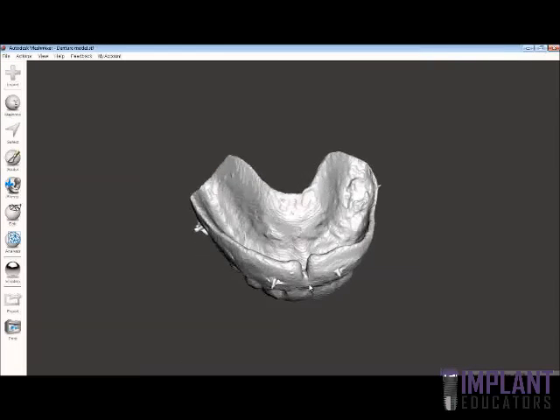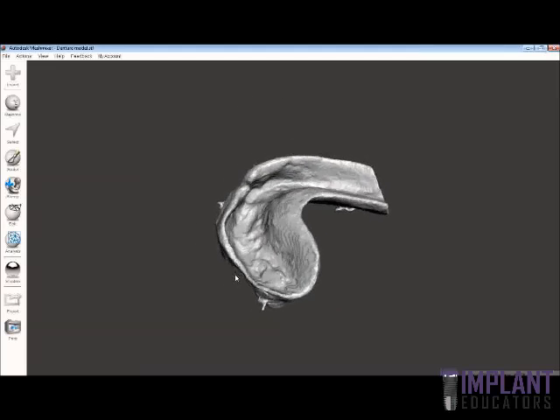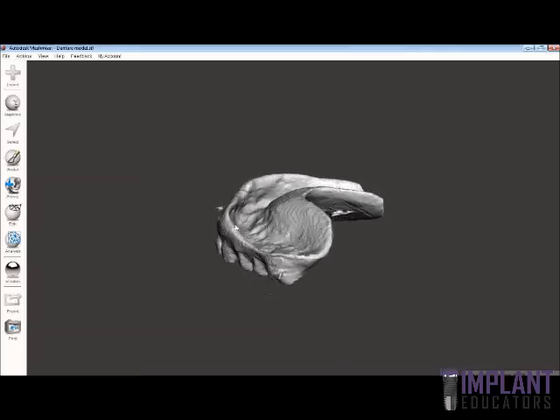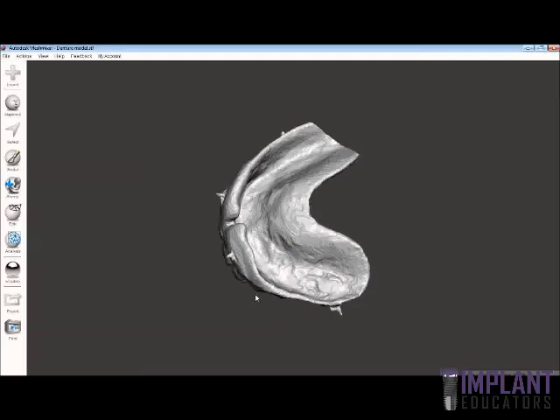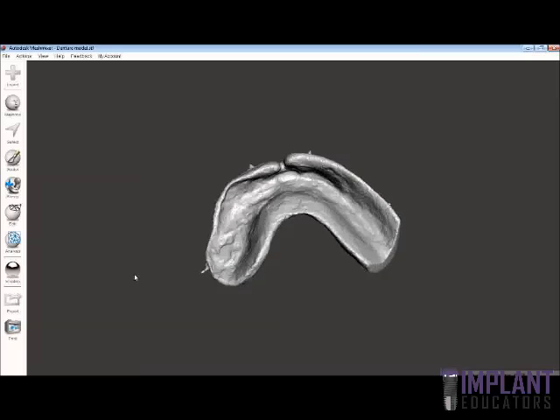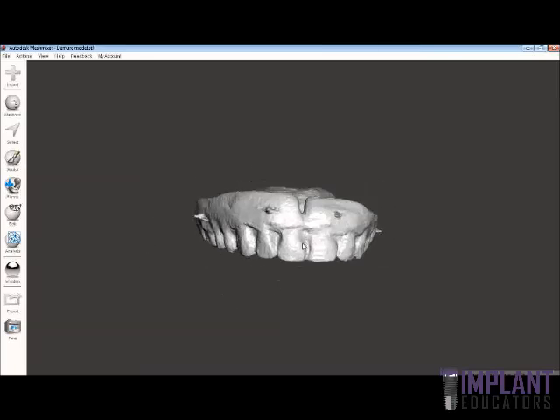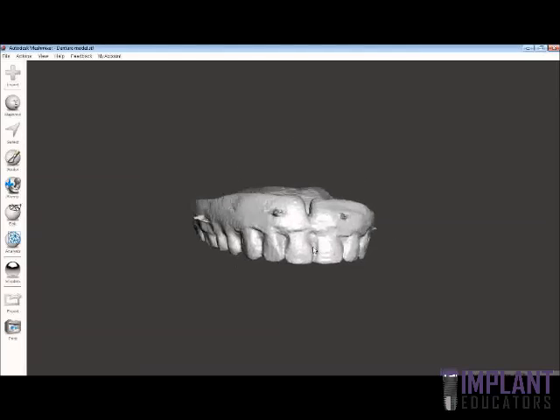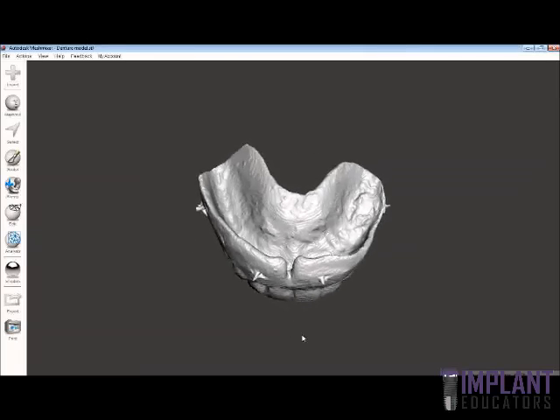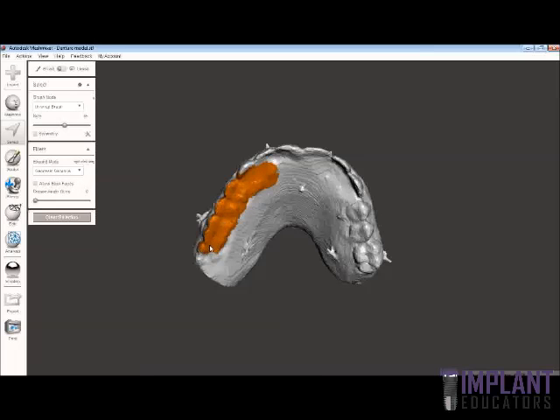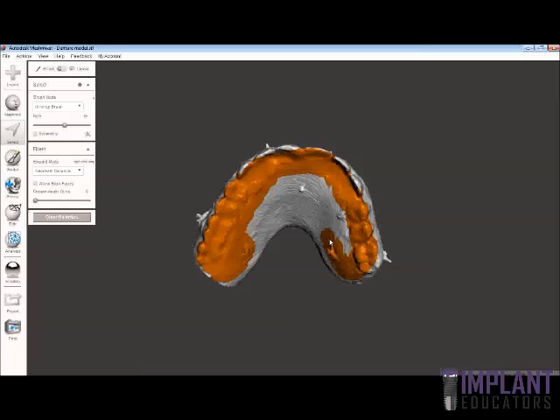This is what the model looks like — you can see it still has fiducial markers. This was exported from the Blue Sky Plan software. What we want to do is invert this image so that we have a soft tissue model, which is going to be based on the intaglio surface of the denture. This brings up an important point: the denture needs to be an accurately fitting denture. It needs to seat well in the patient's mouth without any movement or rocking. If you need to reline the denture, reline it with an acrylic similar to the base of the existing denture. I like to use the paint technique to remove the outer shell of this model — we're going to select the unwrap brush and paint the model so that we get rid of just the outer shell. We'll include our fiducial markers as well.